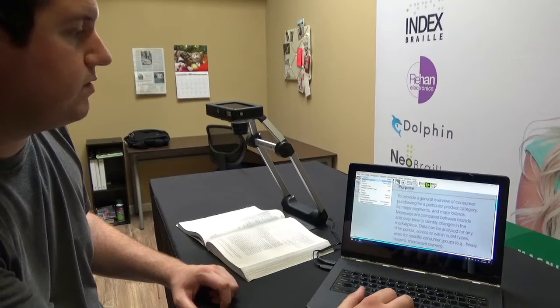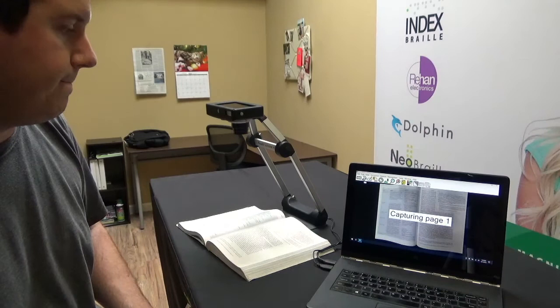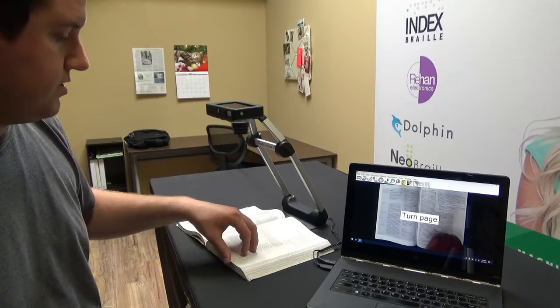And then the second thing I'm going to do is I'm going to go over here to the edit menu and rather than doing a single page capture I'm going to do a multi-page capture. And to do that you can press shift plus enter. That's your keyboard shortcut for that. I'm going to go ahead and start the multi-page capture.